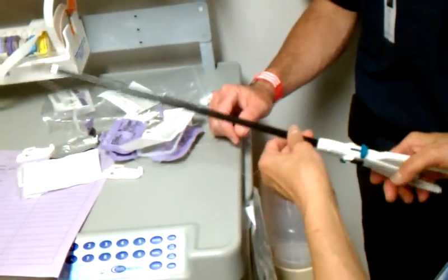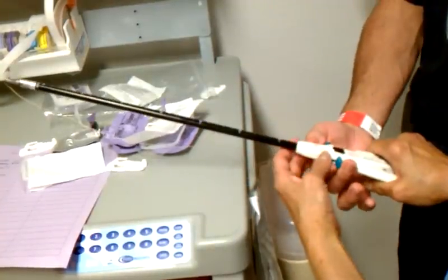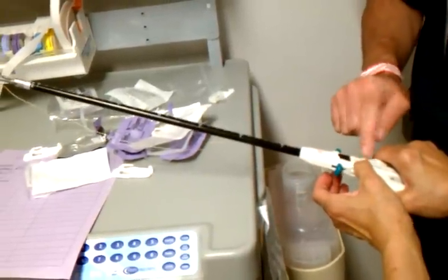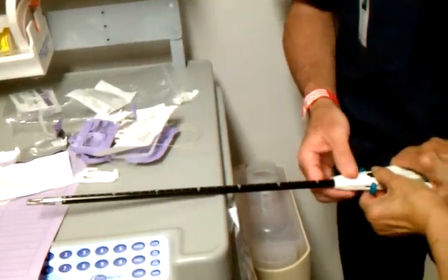And if I want to remove — so you've got to squeeze. You've got to line these two up. Unload: squeeze handle and press top and bottom black buttons. So there's one on the bottom and there's one on the top. You have to push. And then push. So now you're pushing — you've got to push down like this, and it'll slide up.